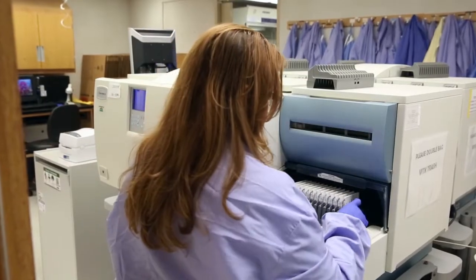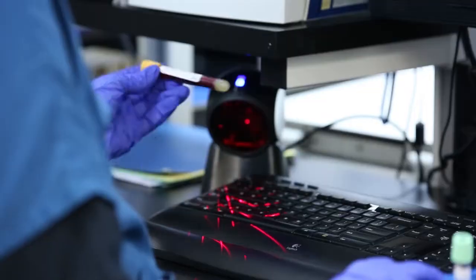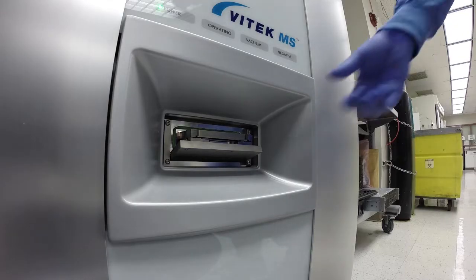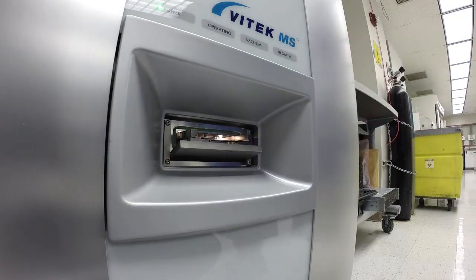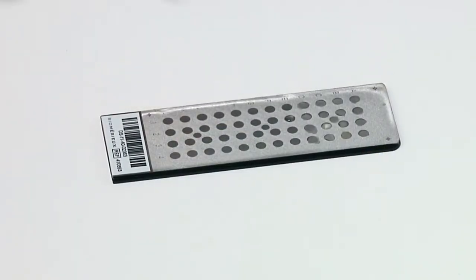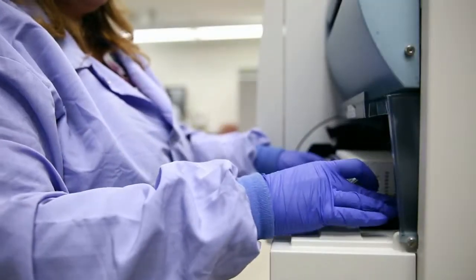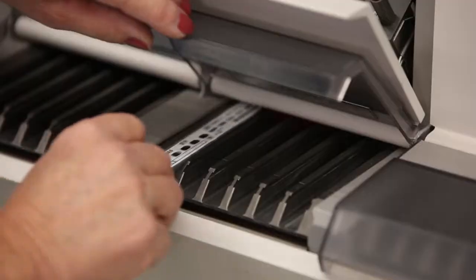When we went to bioMérieux, we've been able to achieve a 25% reduction in turnaround time. MALDI-TOF was this giant leap forward because it is based on proteomic profiling, not metabolic typing, and so it's somewhat of a one-size-fits-all technique. We've already seen what a phenomenal impact it can make.